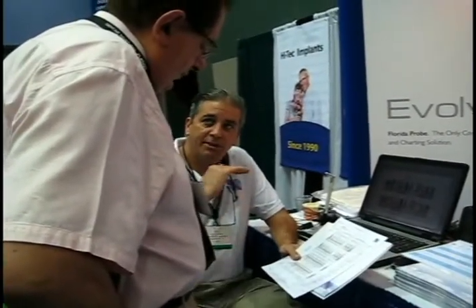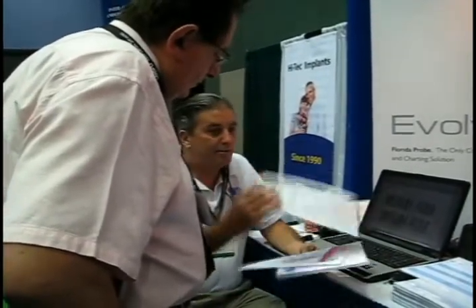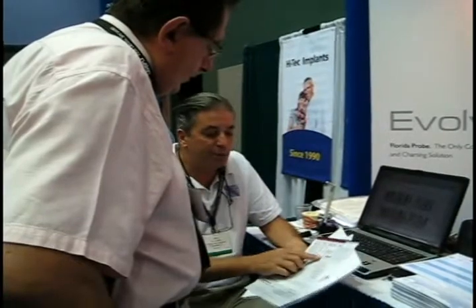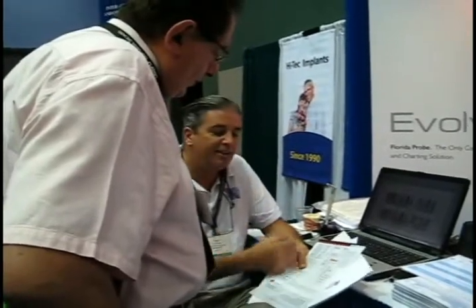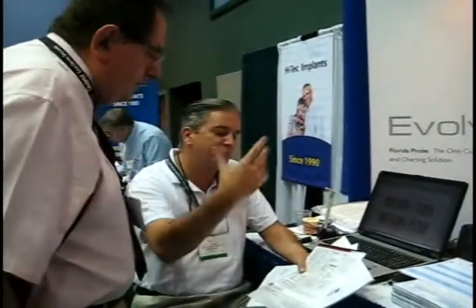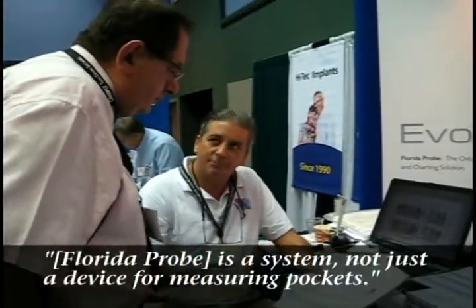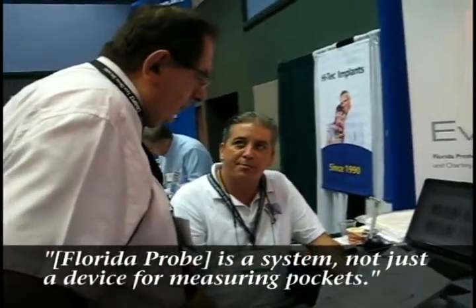We trend over multiple visits. We're looking for a trend over time rather than just a static diagnosis. We do a comprehensive treatment plan and informed consent. There are patient education printouts to take home with the patient, plaque indices, and I can print the risk assessment. This is a system, not just a device for measuring pockets.